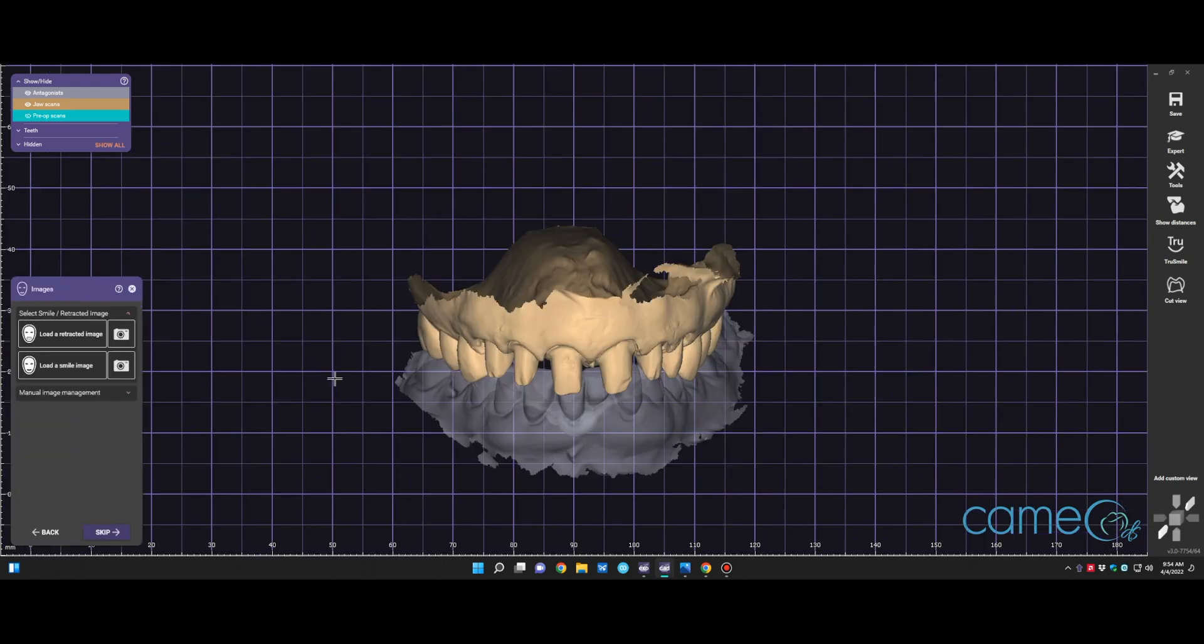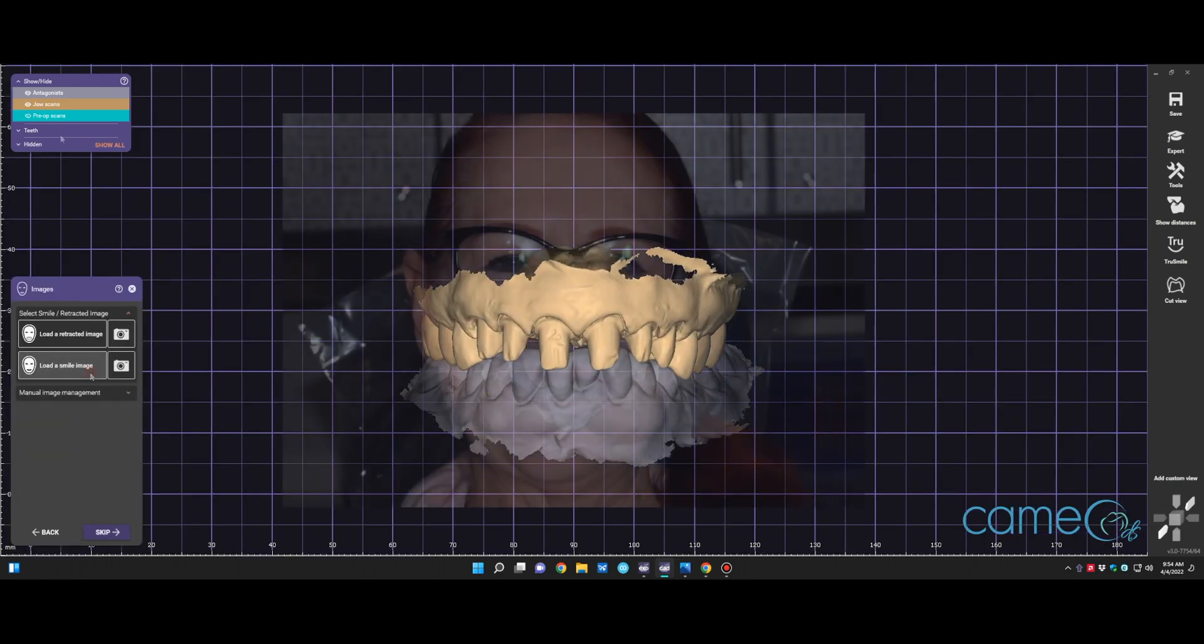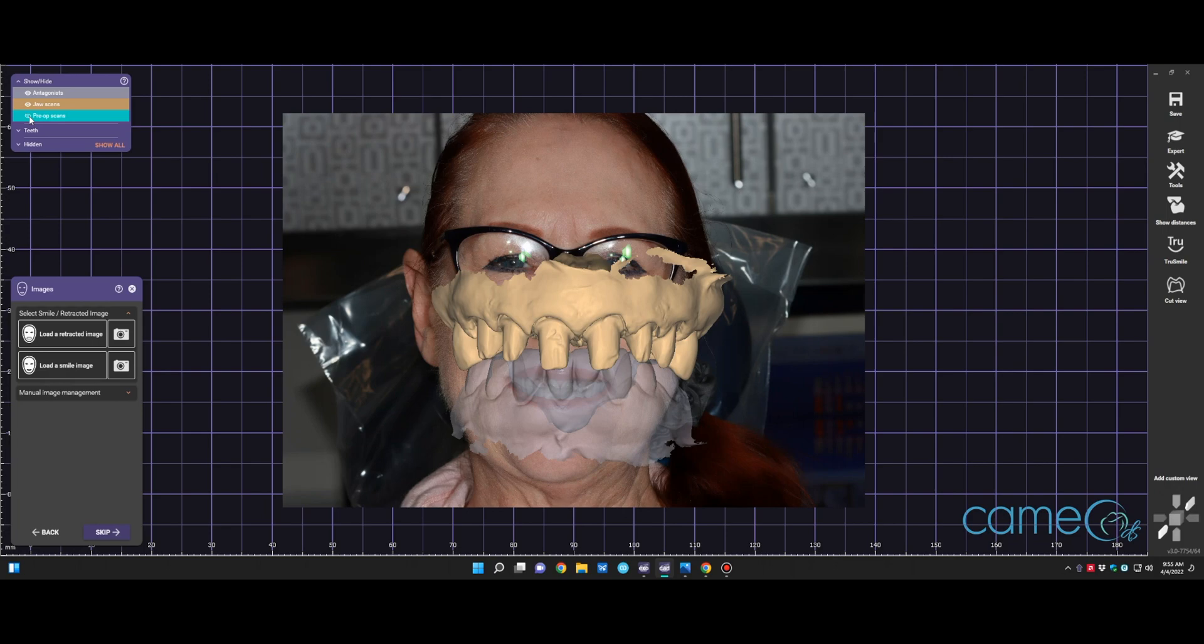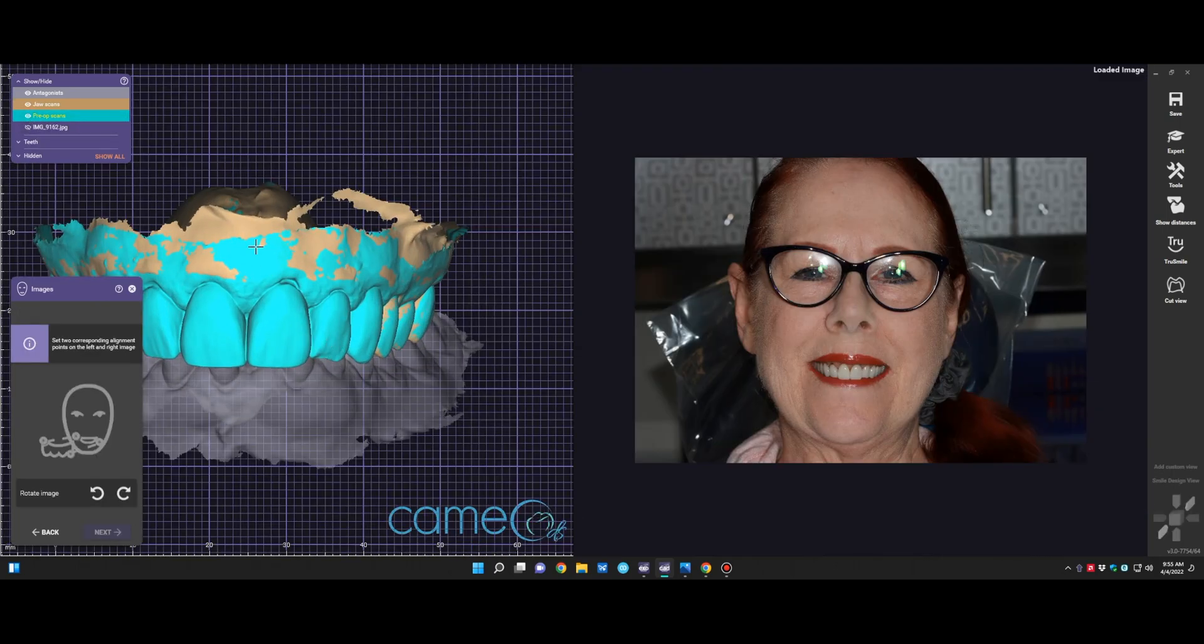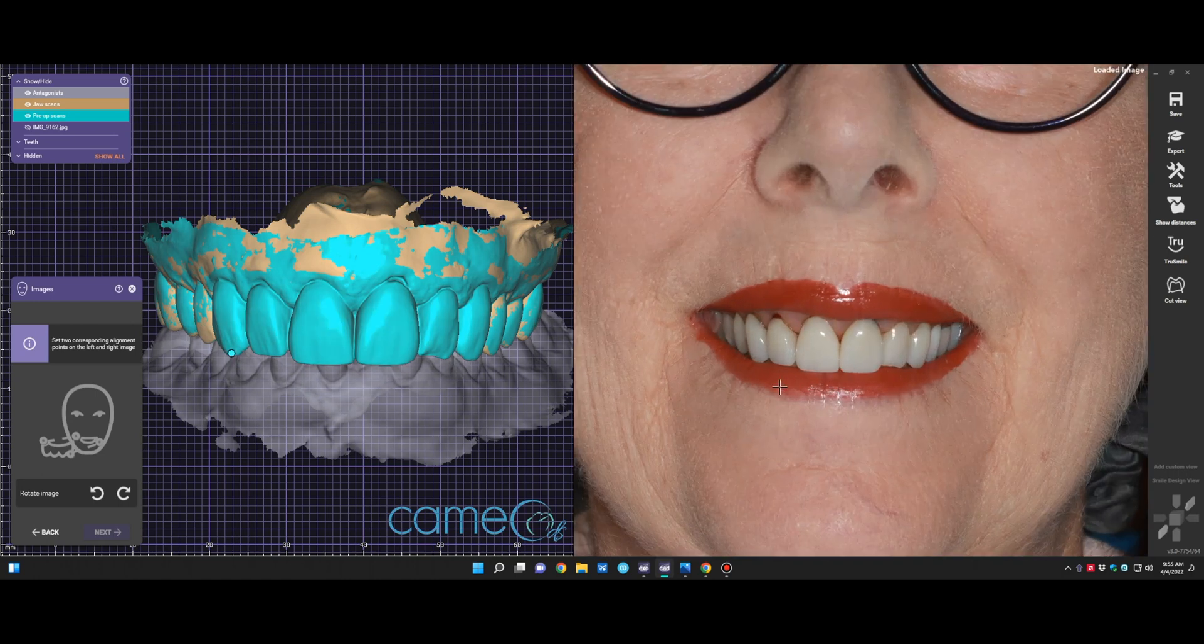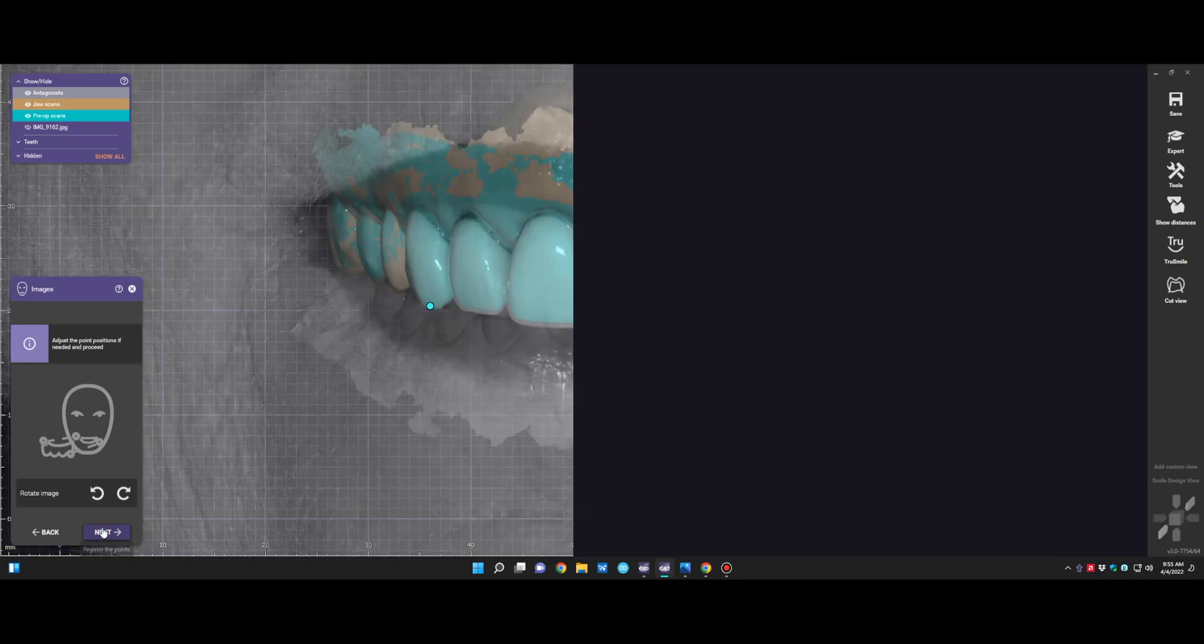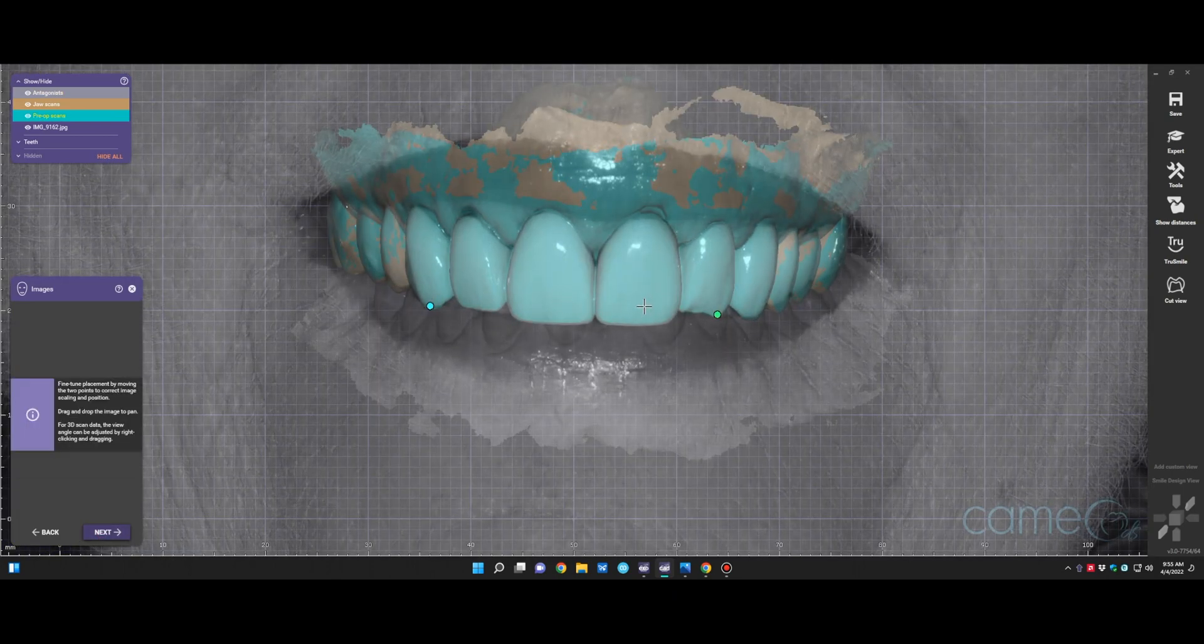Takes you to Smile Creator. At this point, we're wanting to merge in a picture that we obtained. So you click on load an image. It'll again go to the O drive, where it's saved, and grab a photo that you can now use the pre-op scan to align with the photo. So you click on points of reference that are the same on the 3D image and the 2D image. Once you find the same points, you go to next.